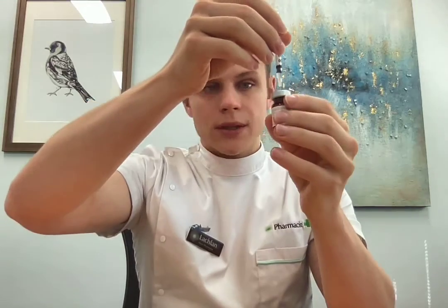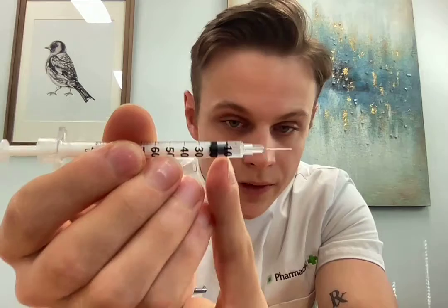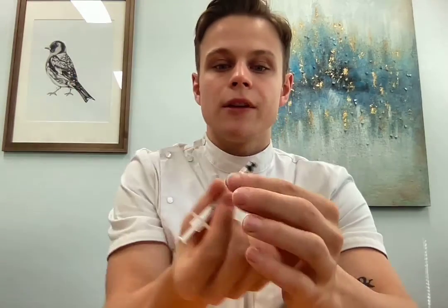Re-invert it so that you don't lose any liquid when you pull out and remove. That vial can go straight back in the fridge because these intracavernosal injections are kept cold, and that dose is ready to go. When drawing up the dose, you can see that there's a thick rubber piece and a thin rubber piece — the thin rubber piece is what you measure the dose from. So that's right on 10 units, that is 10 units of drug.